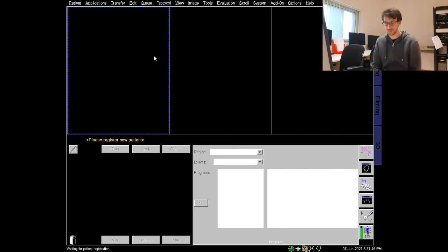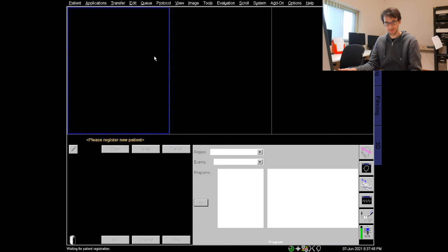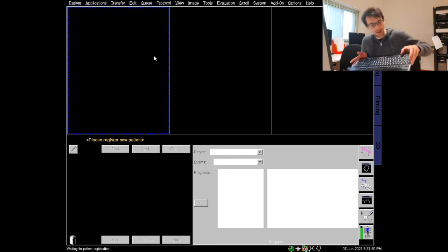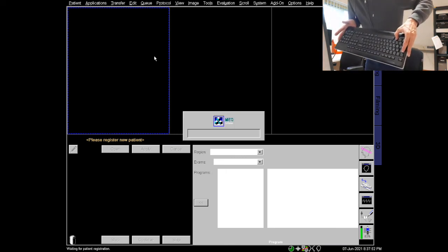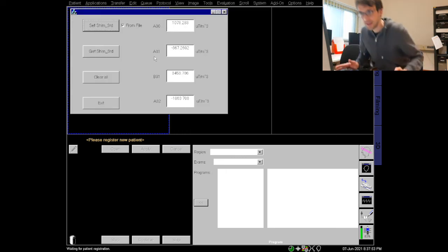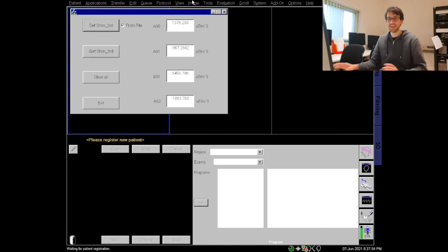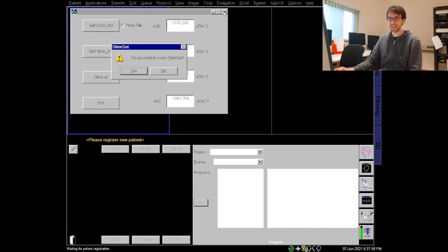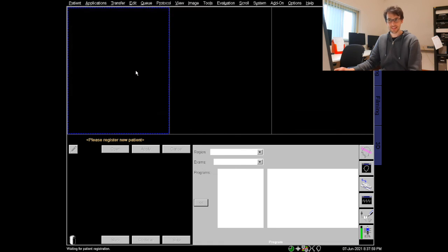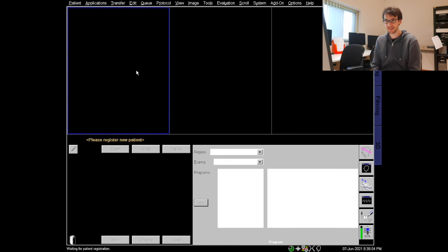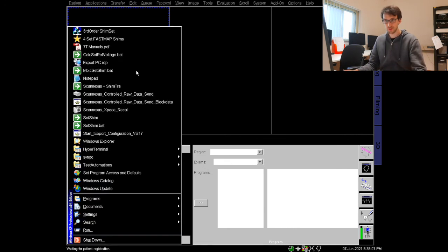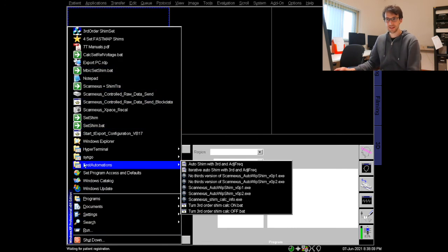First I can close the little GUI from Siemens again with the alt tab shortcut and now I can actually close it by hitting this little X over there and I really want to close it. Yes. Now however we did not switch off the channels, the number of channels that are being used. So again I'm hitting ctrl escape and go back to my test automations and now I want to use the very bottom script here: turn third order shim calc off.bat. This is the one which again is a nice script from Chris Wiggins.